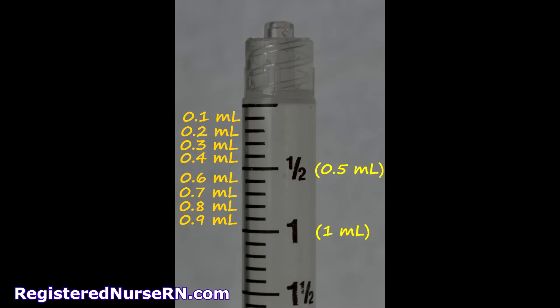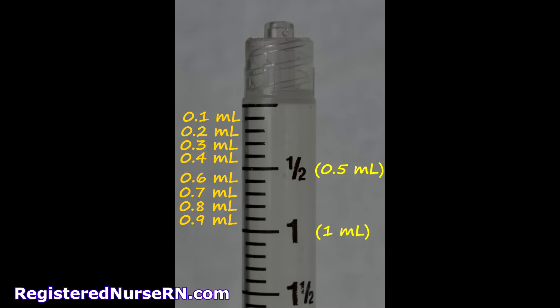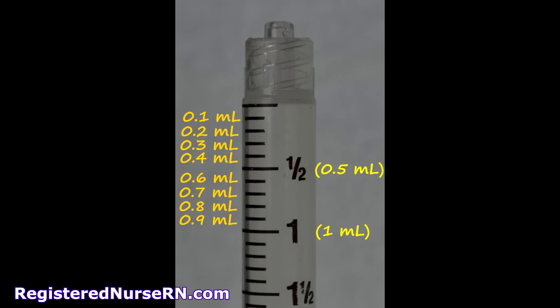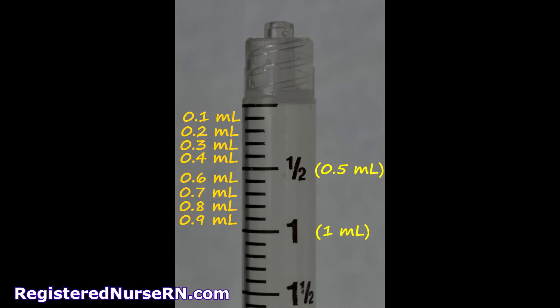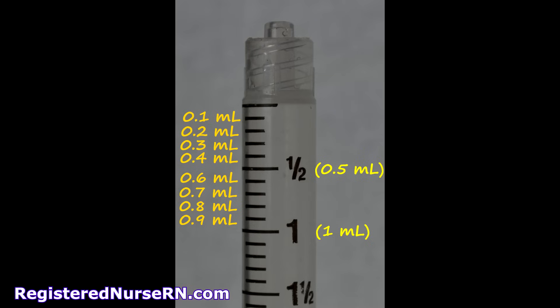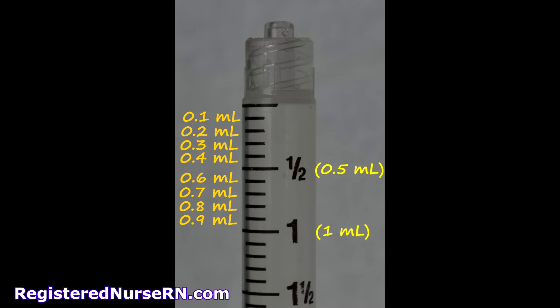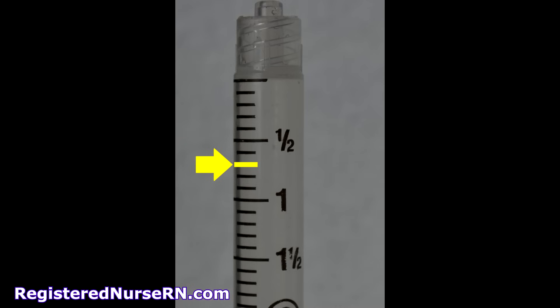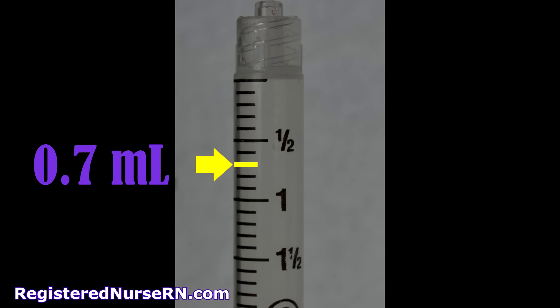Now let's look at the 3 mL syringe. This syringe breaks down the measurement even further, so you can draw up smaller amounts — it's really good for giving 0.5 mL of something. The top line is 0, and then this syringe measures down by 0.1: so 0.1, 0.2, 0.3, 0.4, then 0.5 at the halfway point, then 0.6, 0.7, 0.8, 0.9, and 1 — continuing to a total capacity of 3 mLs. Based on the yellow line, the answer is 0.7 mLs.